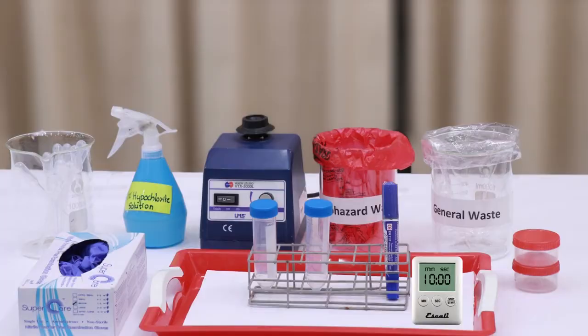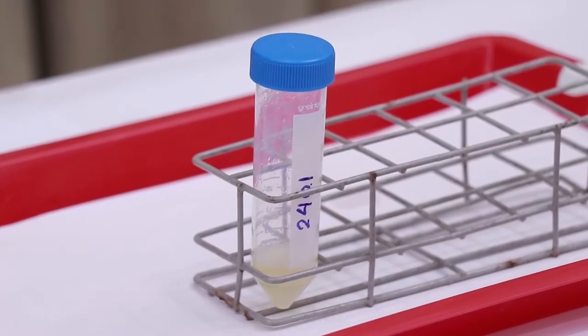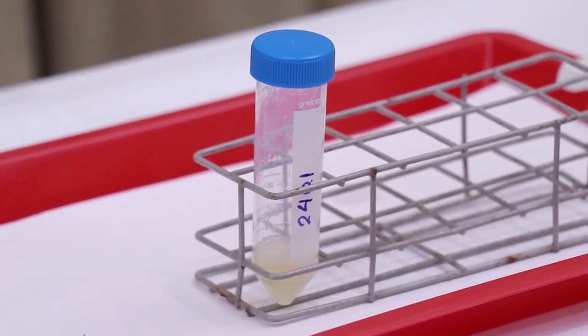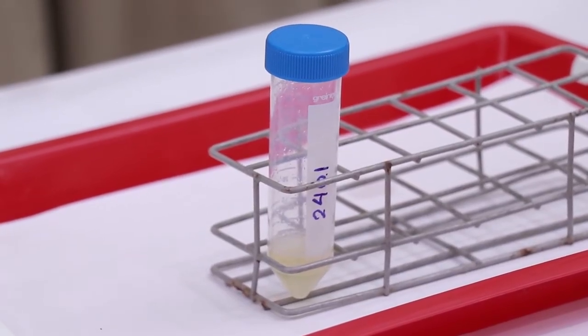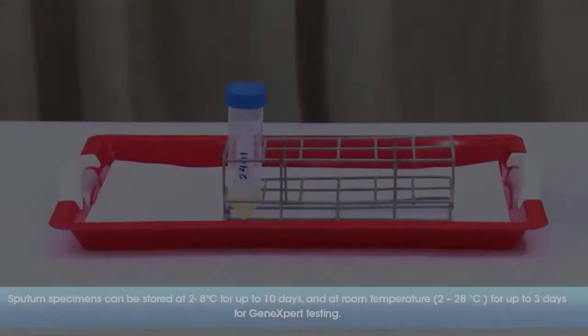This training video will show how to perform the GeneXpert MTB-RIF test using sputum specimens. At least 1 mL to a maximum of 4 mL sputum would be required for this procedure.